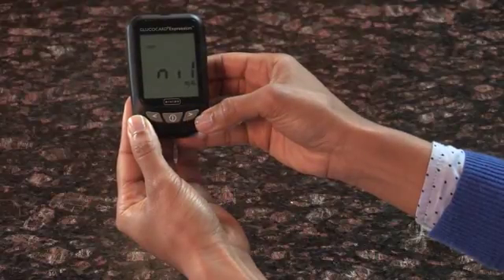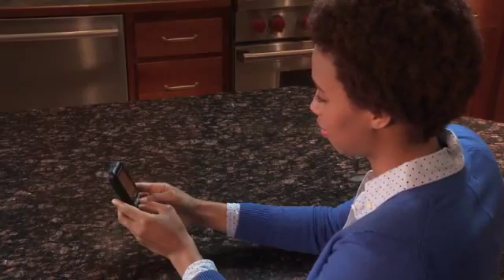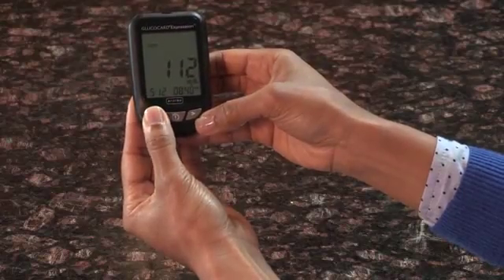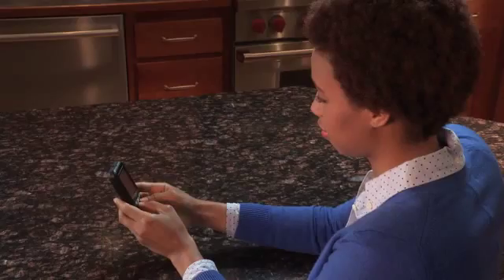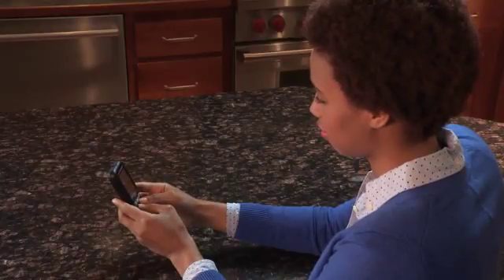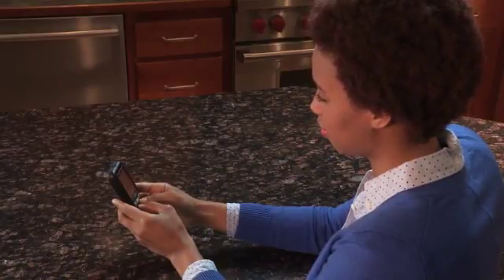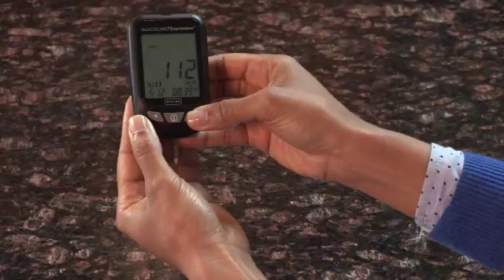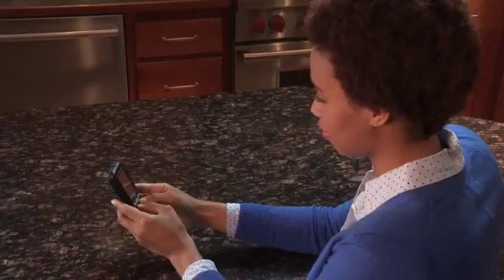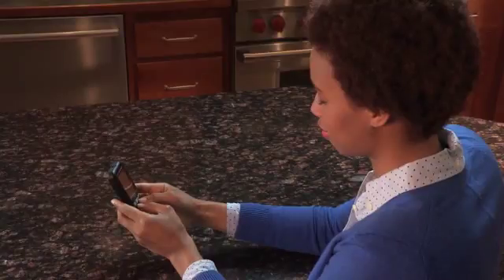NIL will appear on the display screen after the last recorded test result if less than 300 readings are stored. To view your averages, press the left arrow once you are on your most recent test result. The meter will display the 7-day average. Press the left arrow again to see your 14-day average. Press the left arrow again to see your 30-day average. Note that control testing results are flagged by CTL on the bottom left corner of the display screen. If the meter memory is full, adding a new test result will cause the oldest to be deleted.